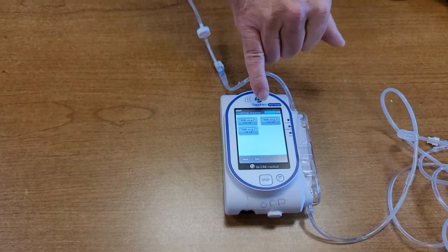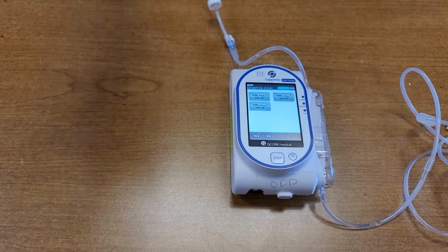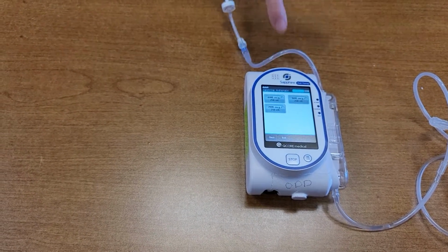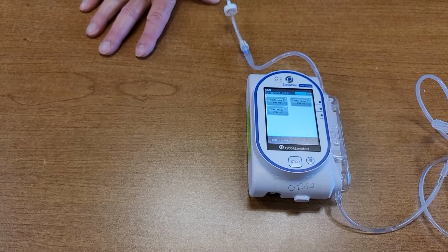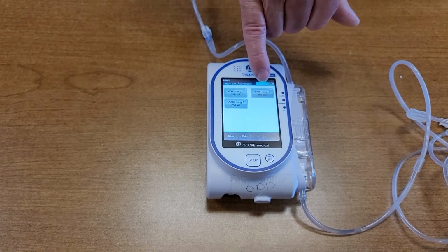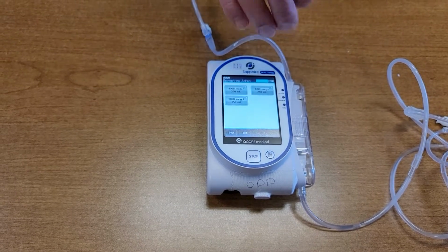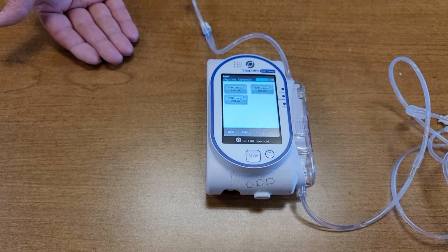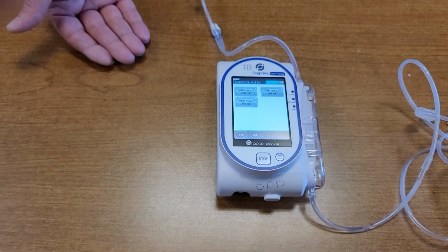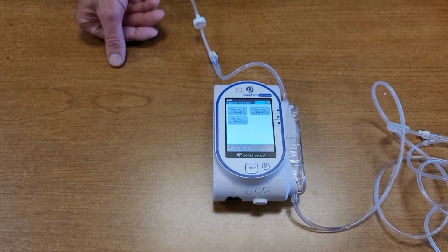So if we tried to make it a milligram in there, if instead of taking 1,000 divided by 250, I divided 250 into 1, that does not come up to 0.01, and the calculator in your pump will not work. It doesn't recognize it. So that's why we had to put this in micrograms as opposed to milligrams, and we didn't think it was safe practice to put half of the epinephrine in milligrams and half of it in micrograms. So for the epinephrine and the norepinephrine or the Levophed, that is going to be micrograms in the bag as opposed to milligrams in the bag to make the math work out for the calculator.